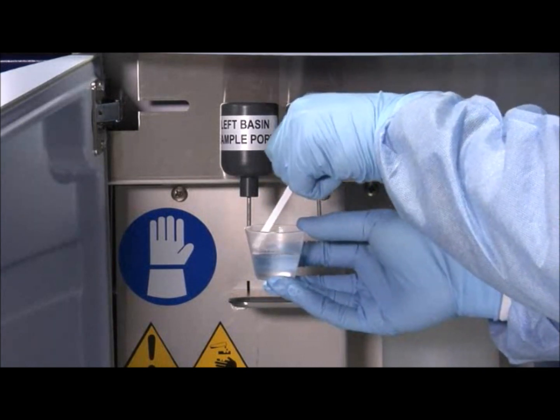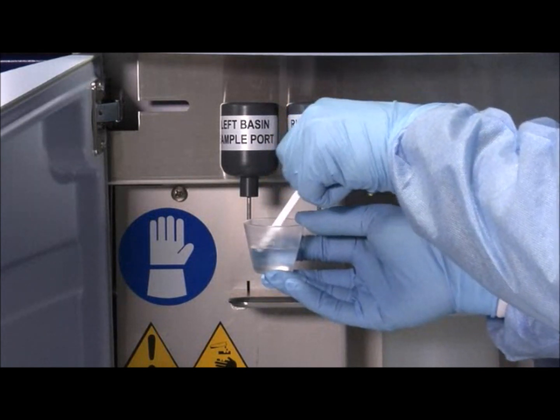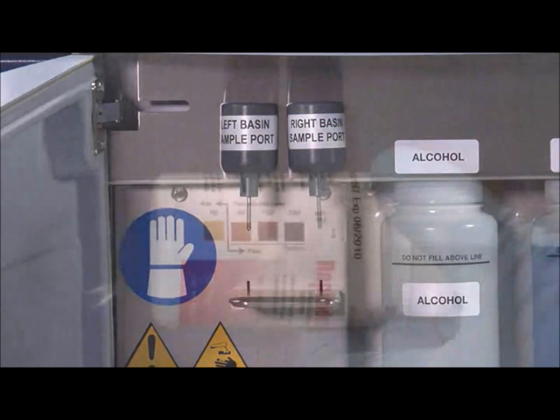Put the indicator portion of the Rapicide PA test strip into the disinfectant for one second and remove.